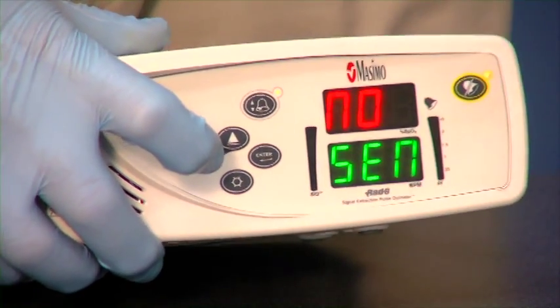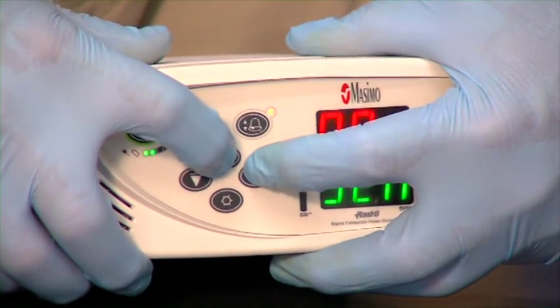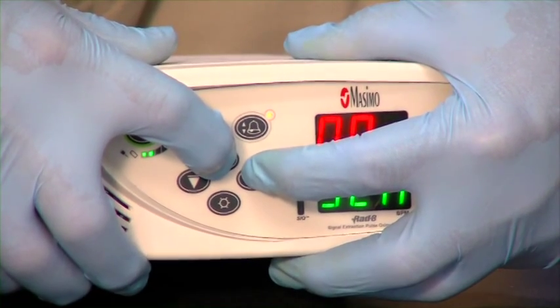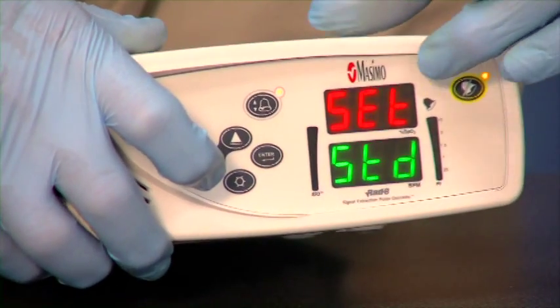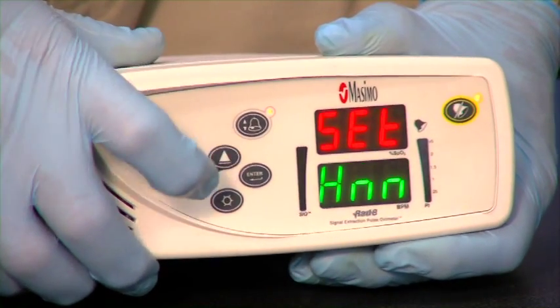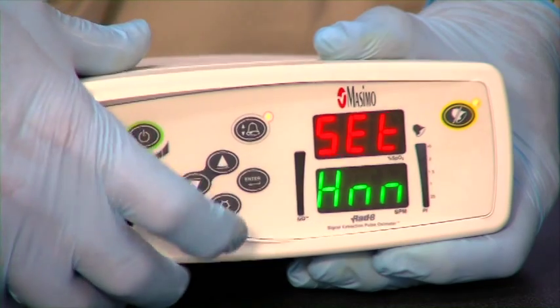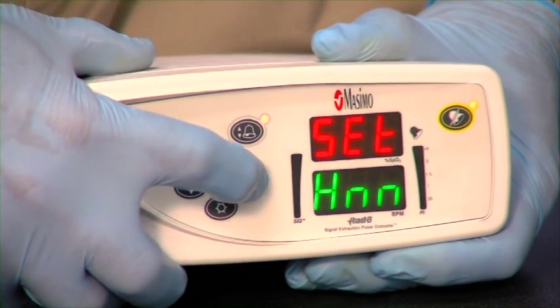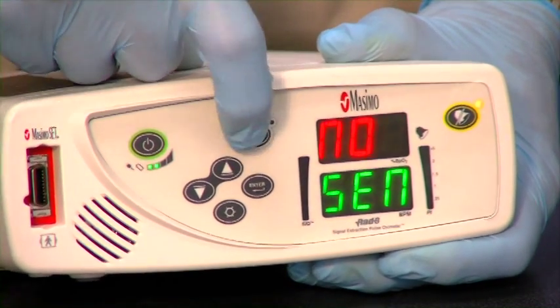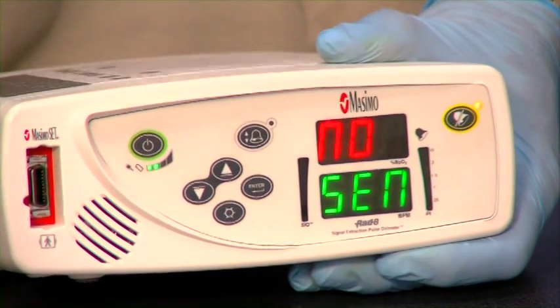We do that by getting back into the selection mode, pressing the up arrow and the enter button until it reads SET in the upper window. We want to get back into HNN mode, which is the home mode. We hit enter, and that locks our settings in. Now no one can get in and adjust those parameters.